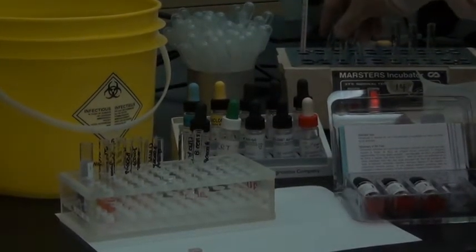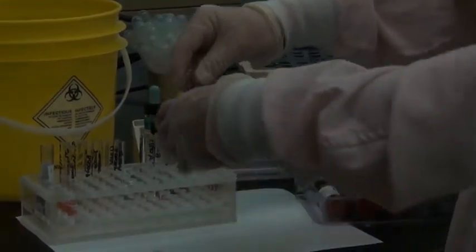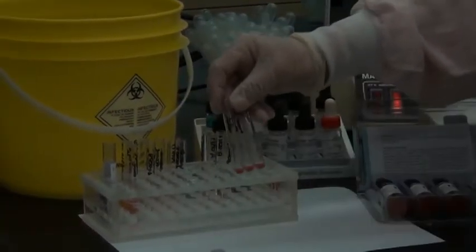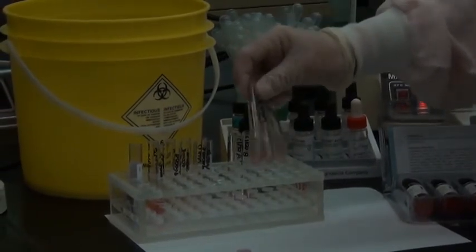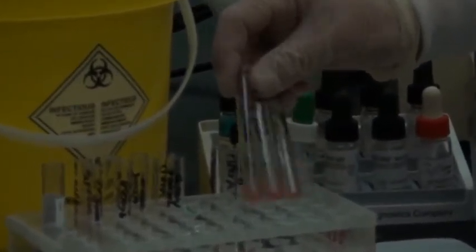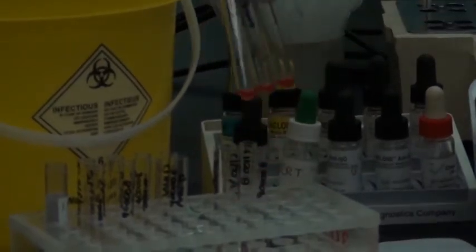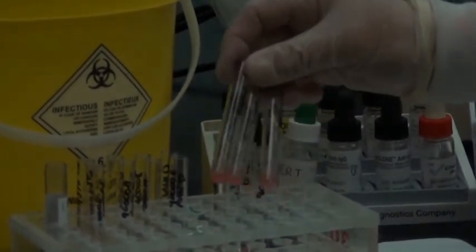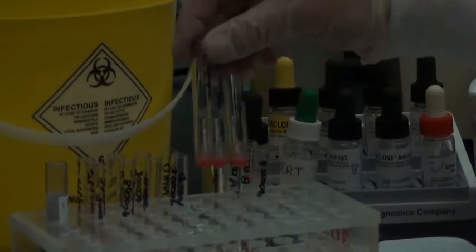So I'm going to grab my antibody screen tube, same patient that had been incubating for some time, for 15 minutes at 37 degrees, and pull them out of the incubator. Before I begin to wash them, this is the wash that's done prior to the use of anti-human globulin, I give them a little waggle because they have been sitting for 15 minutes, and it's always best to have your cells nicely suspended because then they'll wash better.